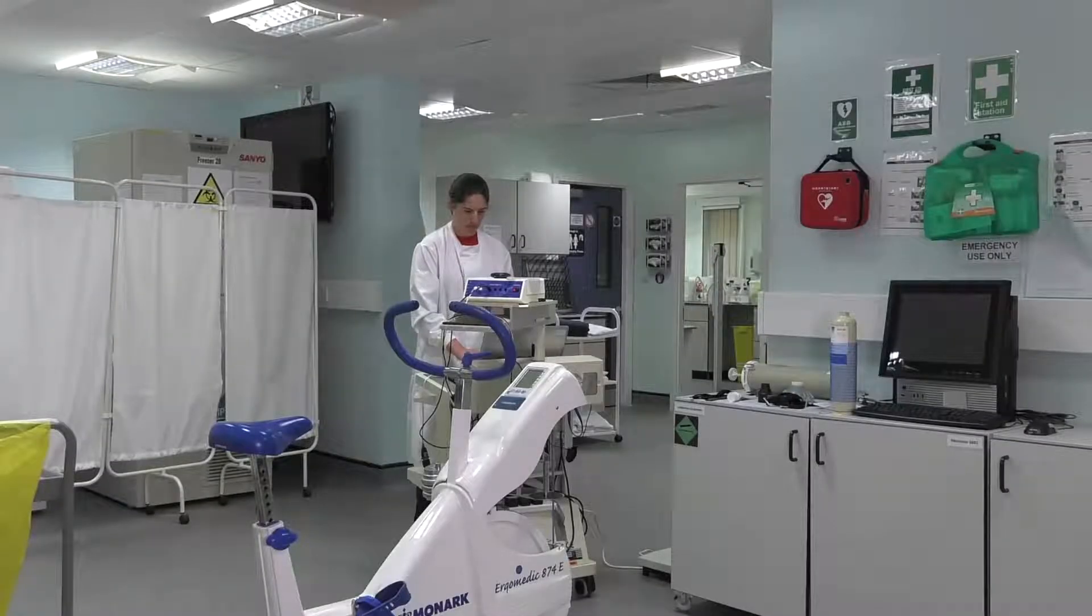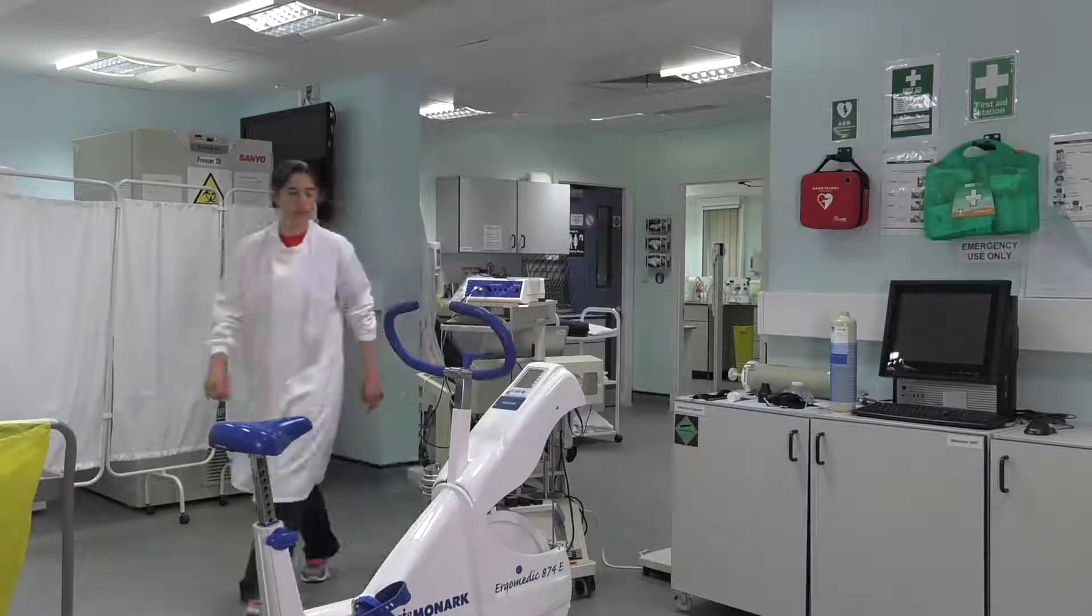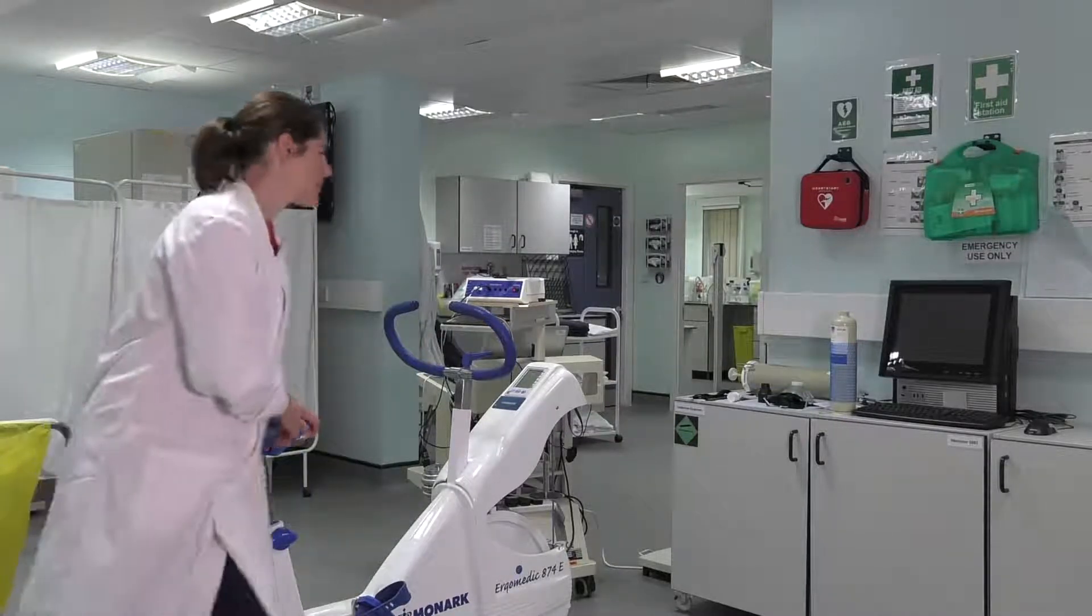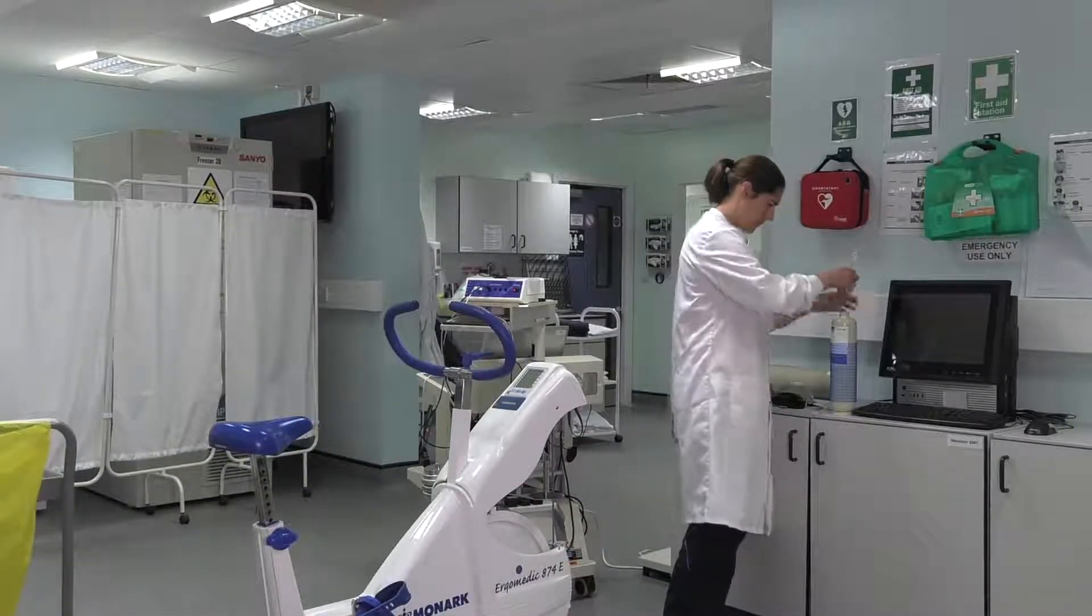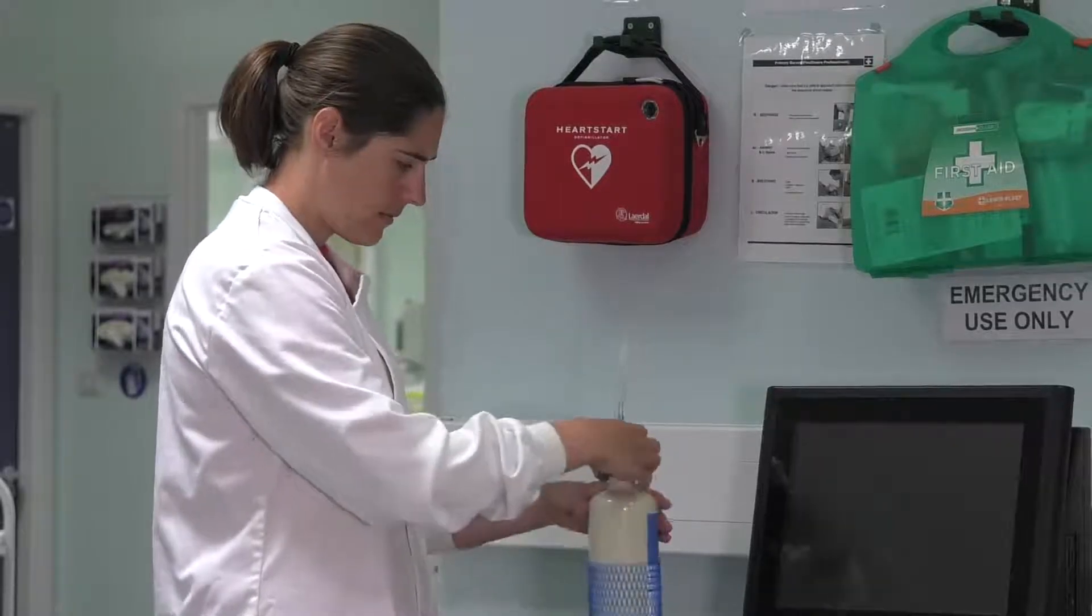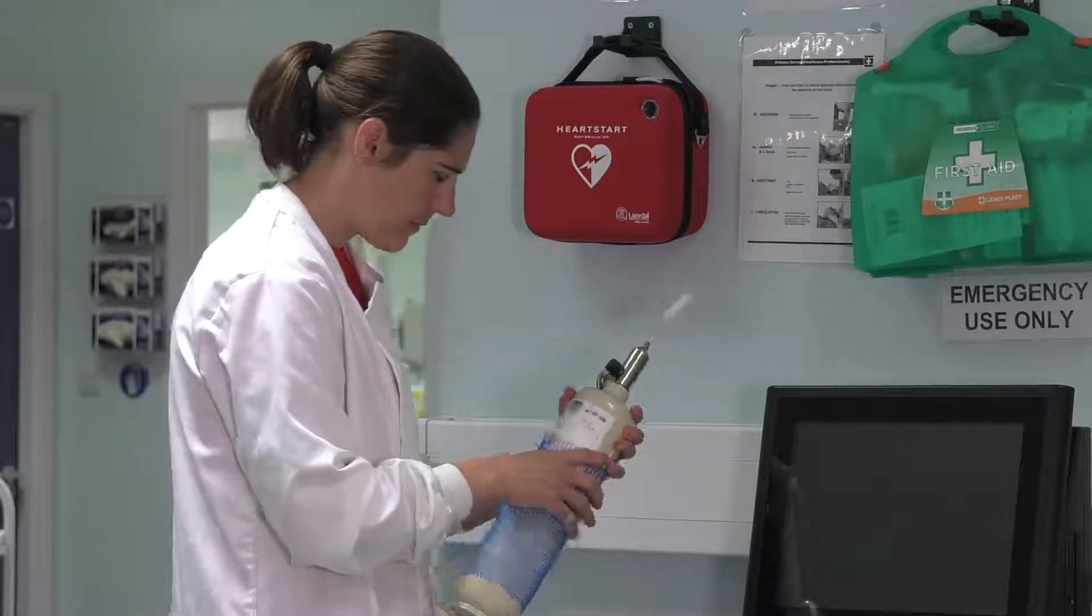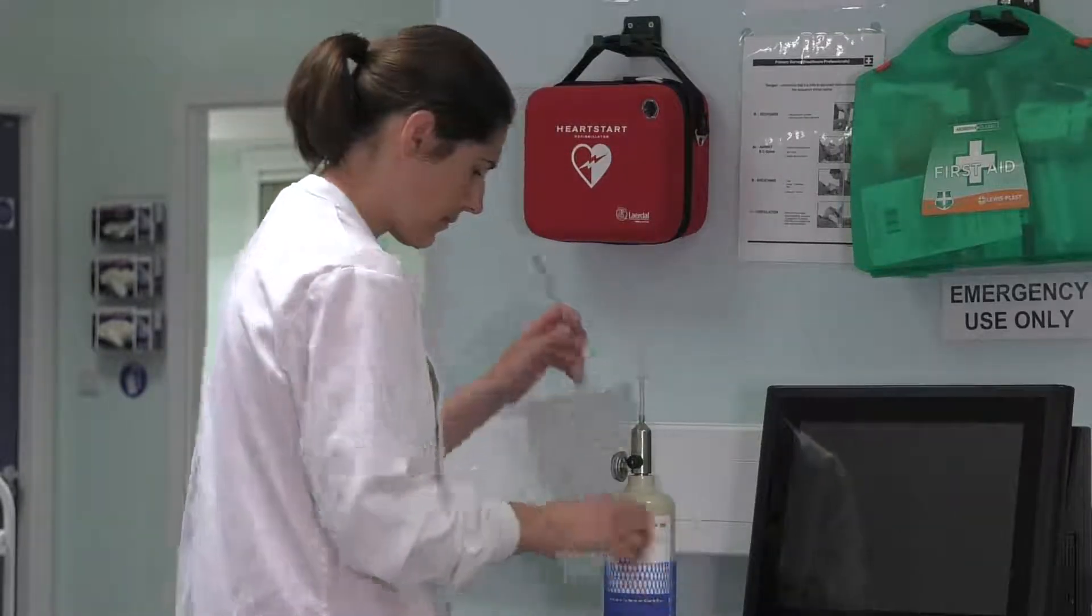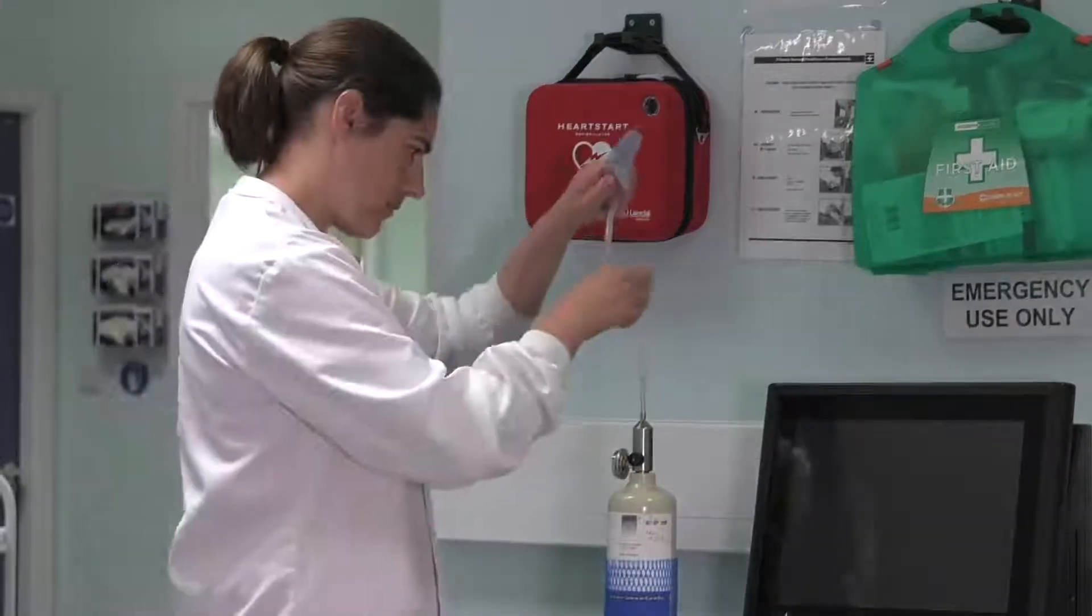This gas is collected from a gas cylinder and there is a certain percentage of oxygen and carbon dioxide. You need to connect the valve to the gas cylinder and then connect the gas bag to the valve.